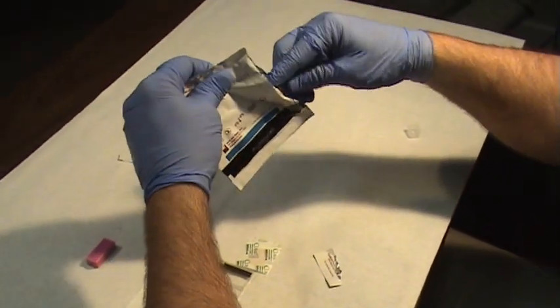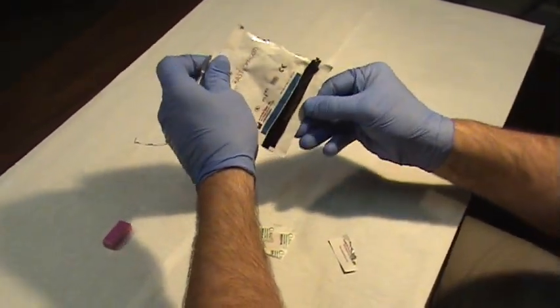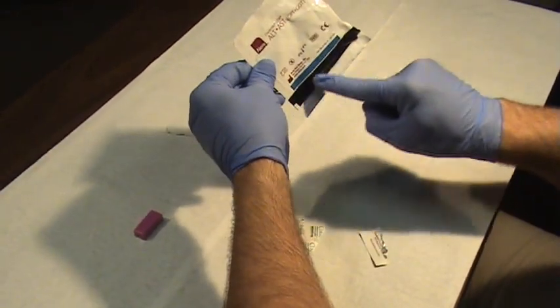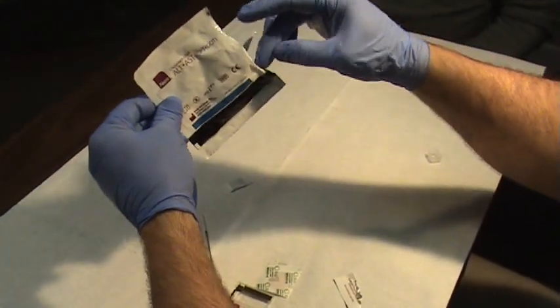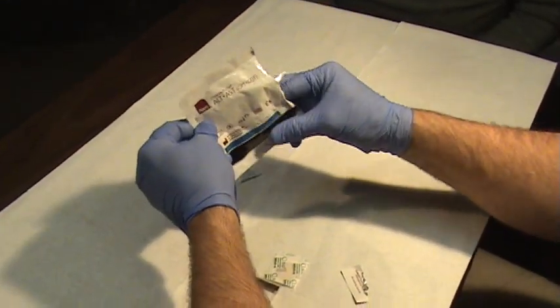Place this firmly in the bag that the cassette came out of. Place it along the black ridge and you'll put your lancet in there. Don't seal it yet because when you're done with your cassette, you'll take the cassette out.